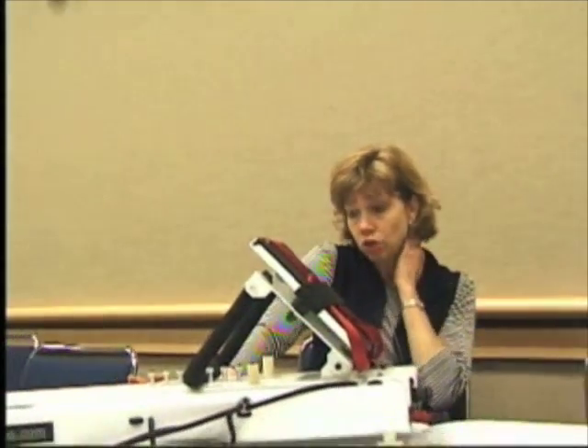Hi, I'm Kate Mangione. I'm an associate professor of physical therapy at Arcadia University in Philadelphia, Pennsylvania. I use the Shuttle Mini Clinic for research that I do with frail elders who have sustained broken hips. I take the Mini Clinic into these people's homes, and the older women — the average age is 80 years old — exercise with the Mini Clinic.